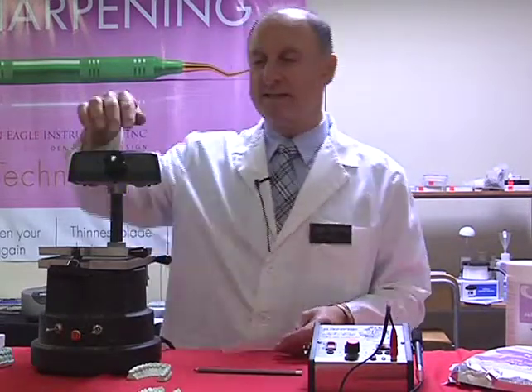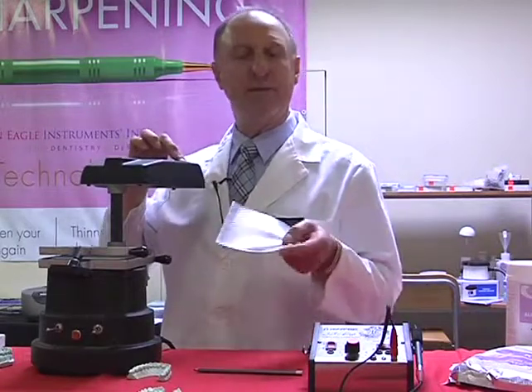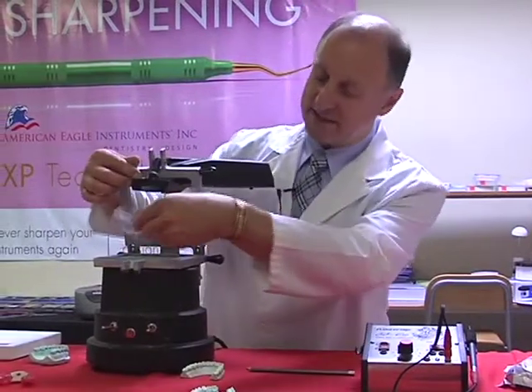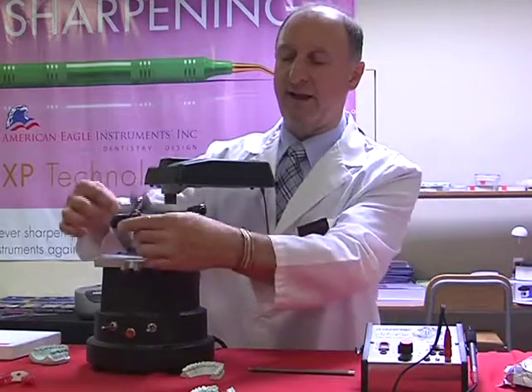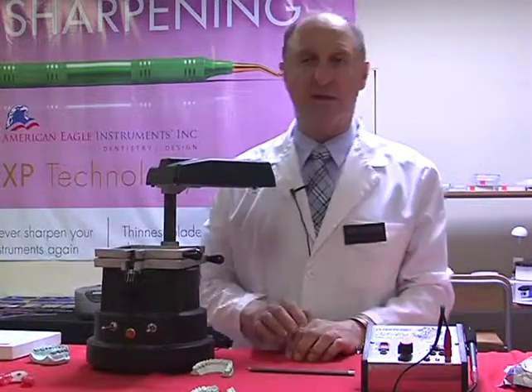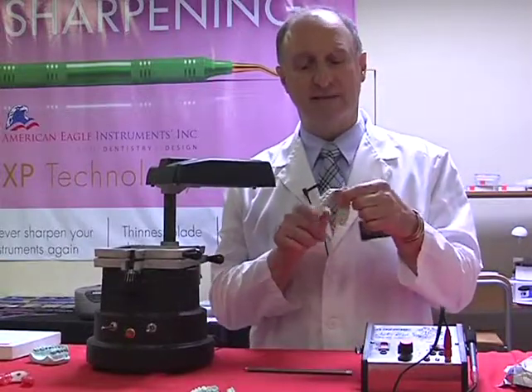So let's open up the machine and apply a sheet of the material, and this is how we would actually load the material into the system. So as this lifts up, I would apply this in easily and simply so it centers into the area. I then lock that into place. Now, very important, my model itself. You'll notice in this case I've removed the palette.